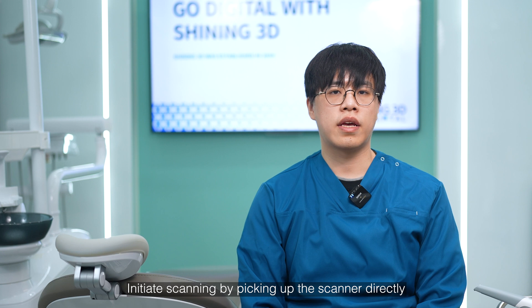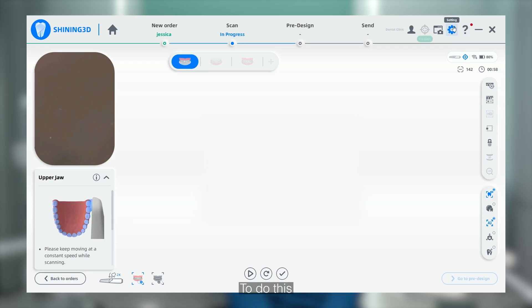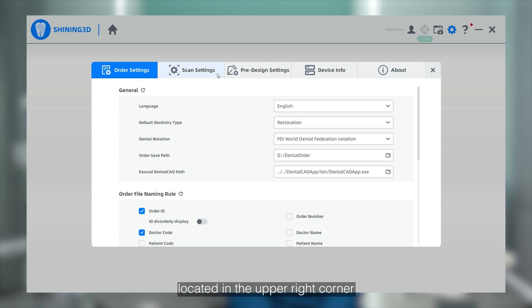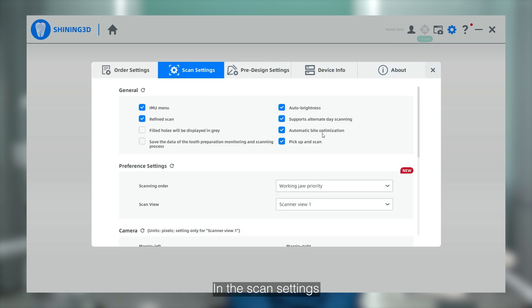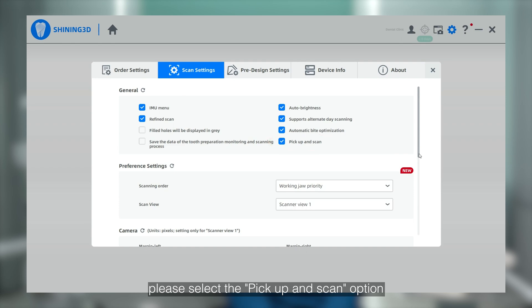Option 1: initiate scanning by picking up the scanner directly. To do this, open the Settings window located in the upper-right corner. In the Scan settings, please select the Pick up and Scan option.